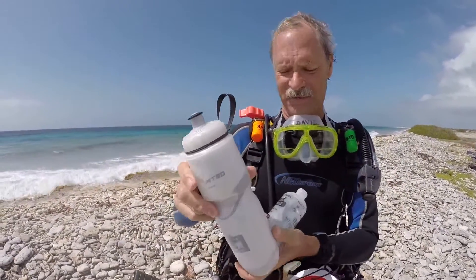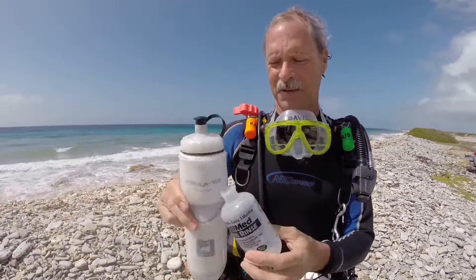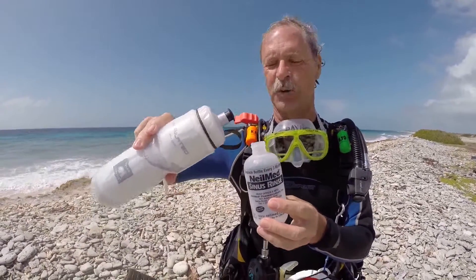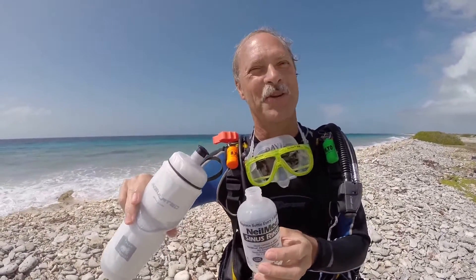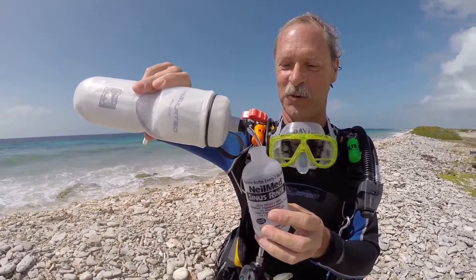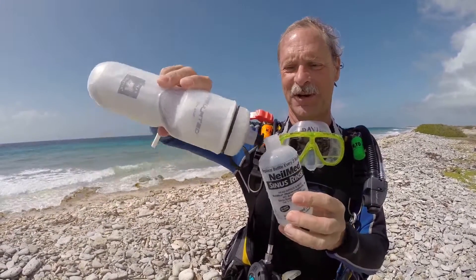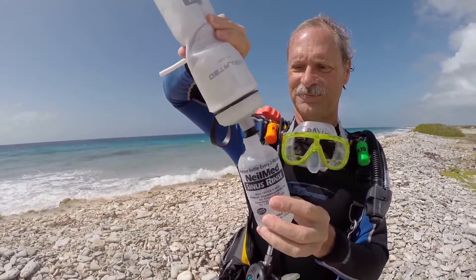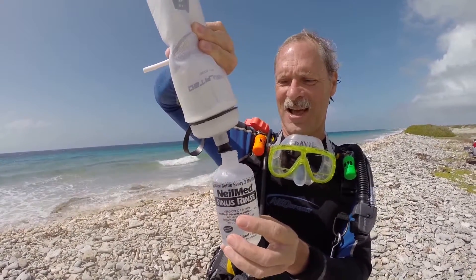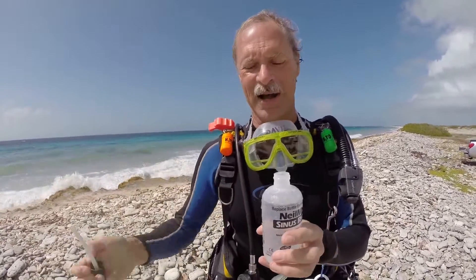In here, I have brought along a thermos with lukewarm distilled water. See if I can do this without the wind blowing me all over the place. Mix it up good, and we'll fill this up to the line. I'm going to drop this just to get it out of my way.